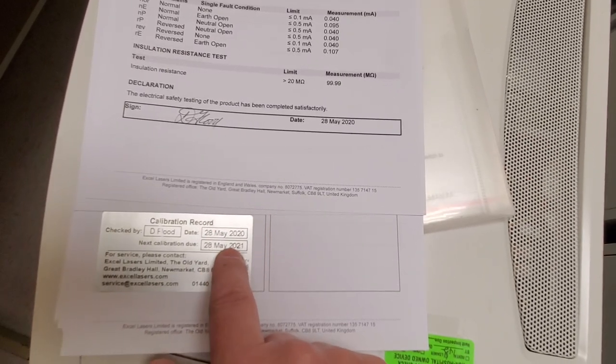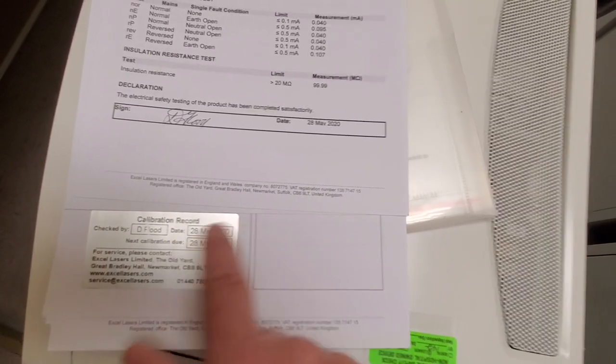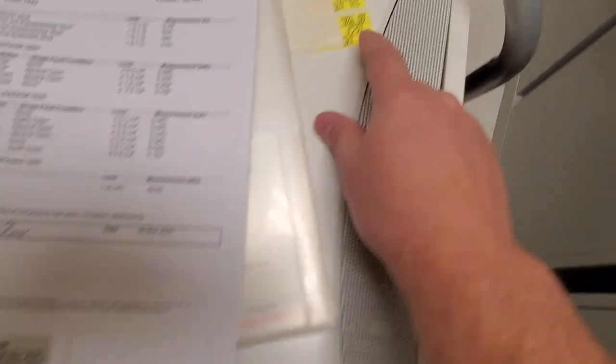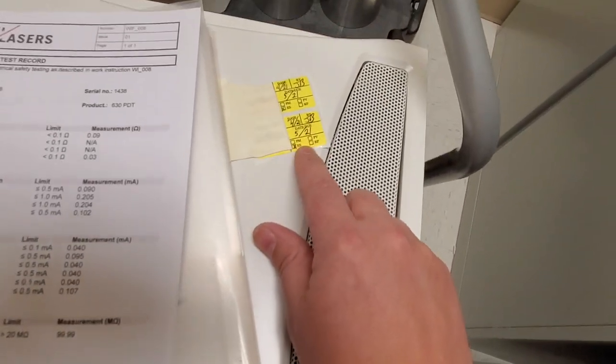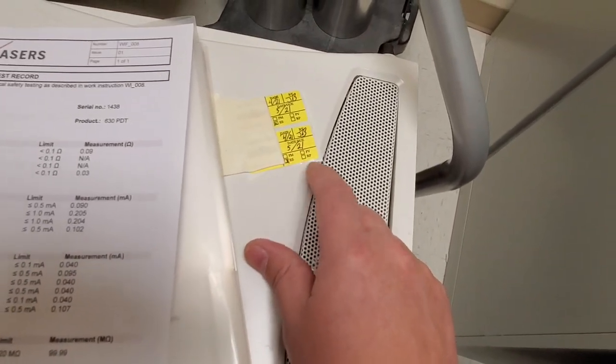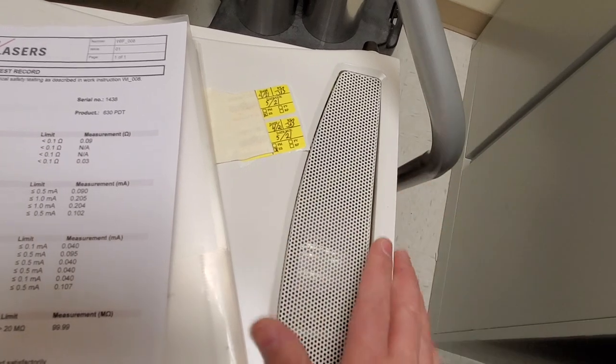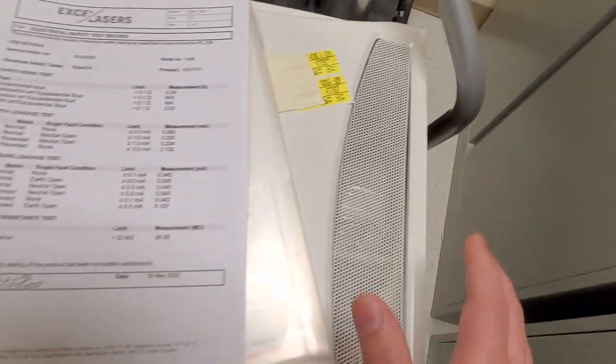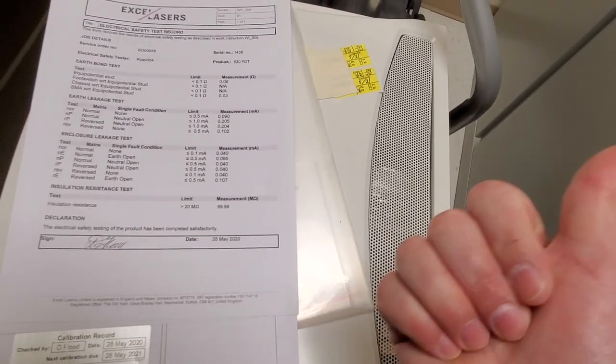And it's going to expire next month because of this date. This laser cannot be here past this date. So, you can see that I've annotated that the fifth month, it's going to be gone.